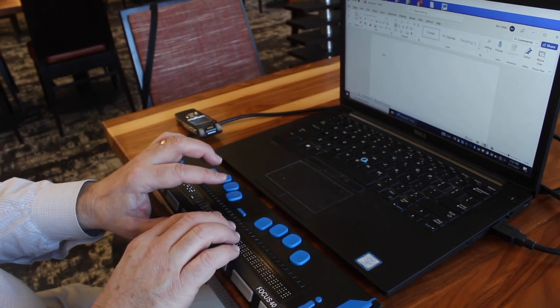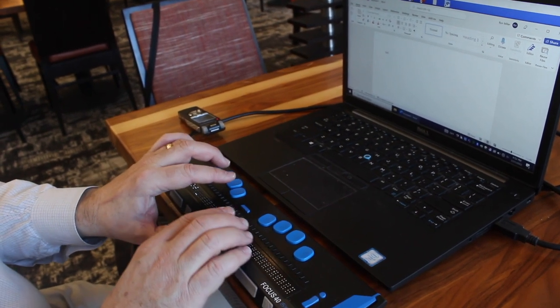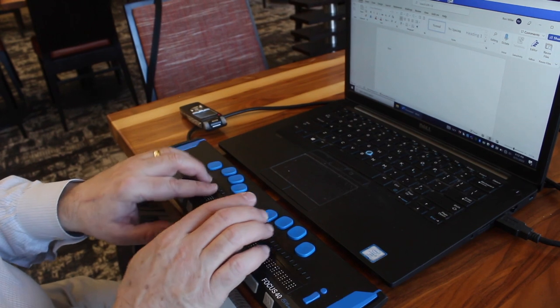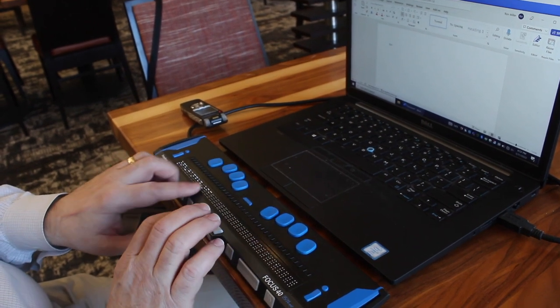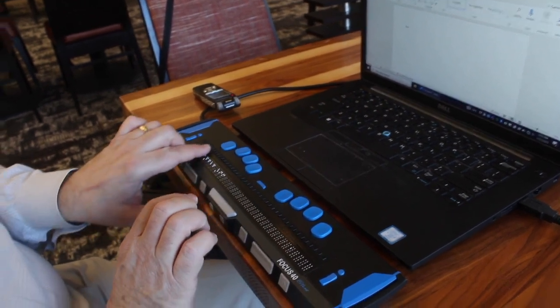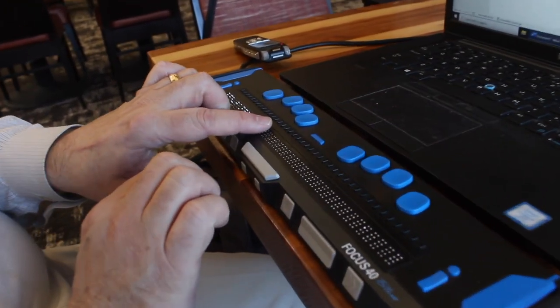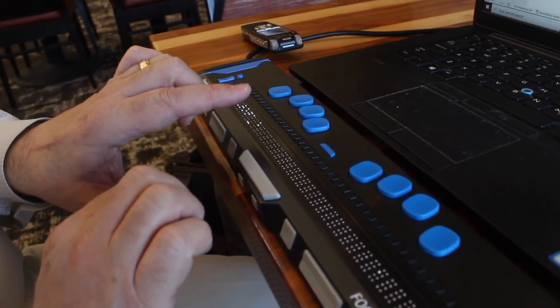The quicker way to turn off one-handed mode is to press dots 1, 2, 3, 7, and right shift, followed by the space bar. You can see what the display says, one-handed off.